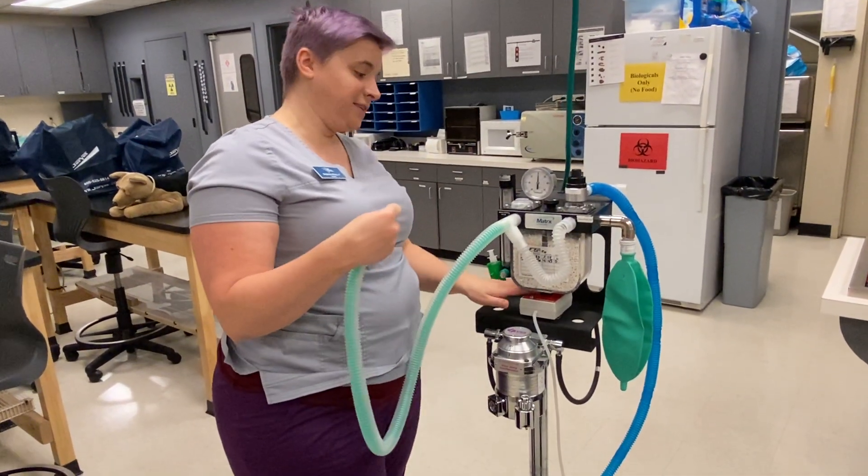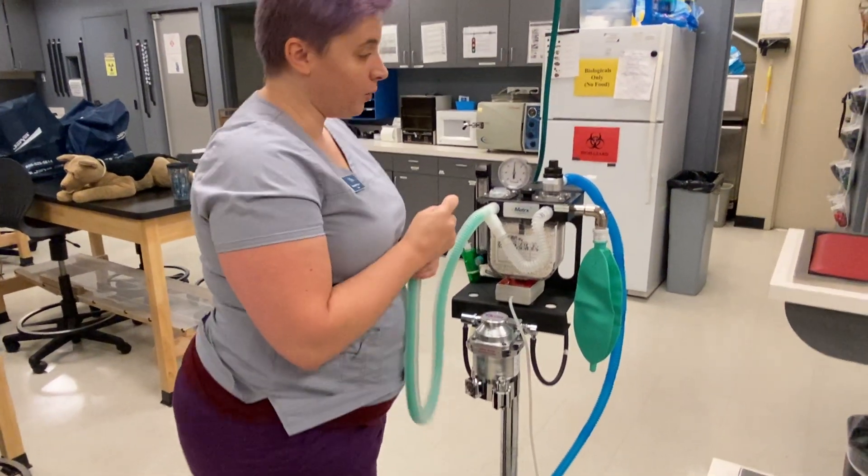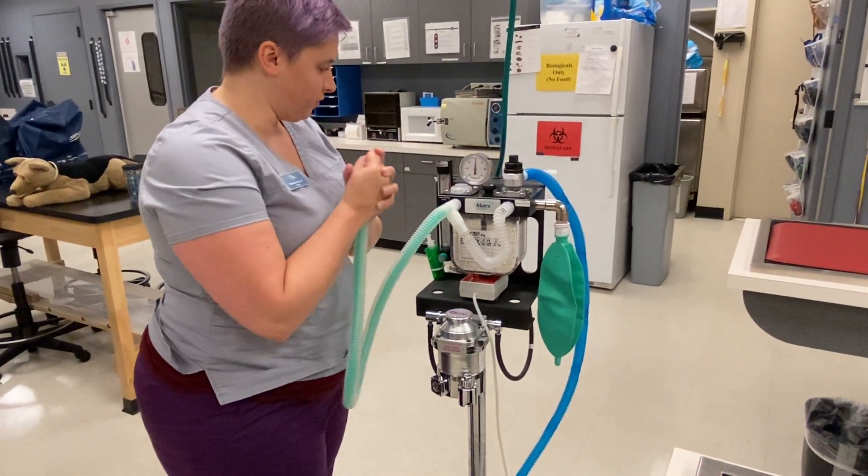Normally your instructor is going to sit here and cover it so it's not quite as loud, because if you cover it it's not as loud and annoying. But we do want it attached — if we disconnect it, then we'd have to re-pressure check all over again.